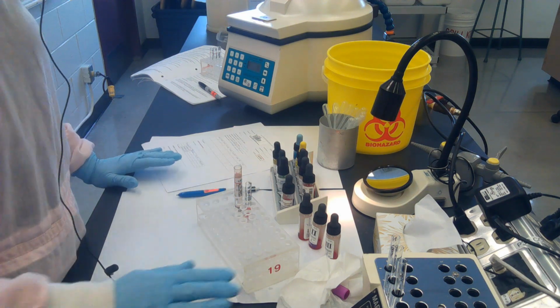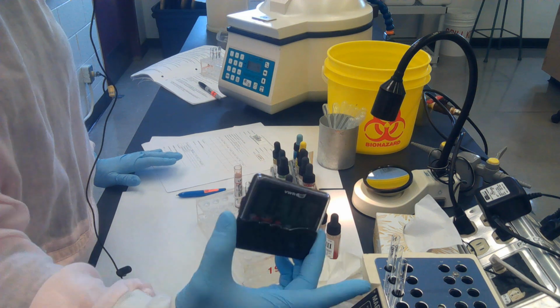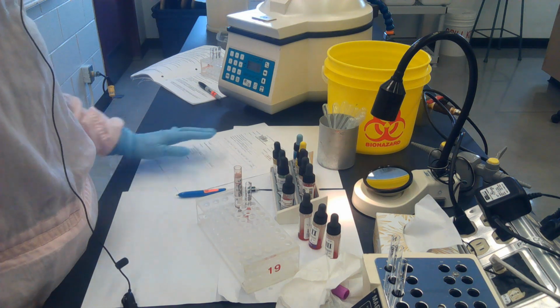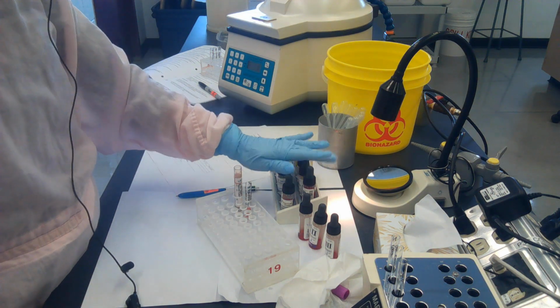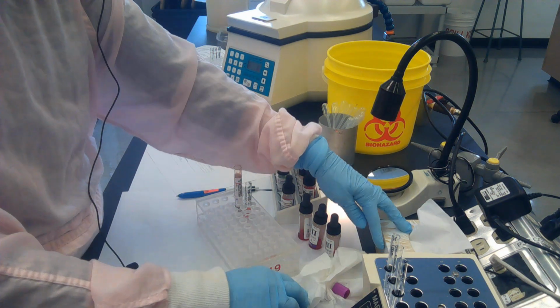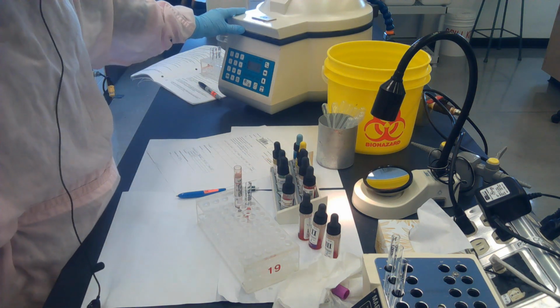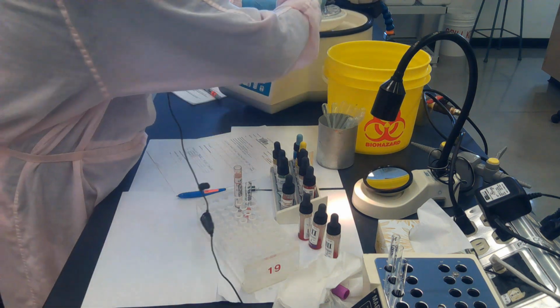It's nice to get the screen cells started first, because you do have 15 minutes, and now I'm sitting at just under 12 minutes. So you have plenty of time to get your ABO and RHs done, maybe recheck your paperwork. If you've got a bit of time, you can make sure you've got your reagents nicely stocked, and be ready to start washing your antibody screen when the bell rings. So let's get this ABO read and recorded.